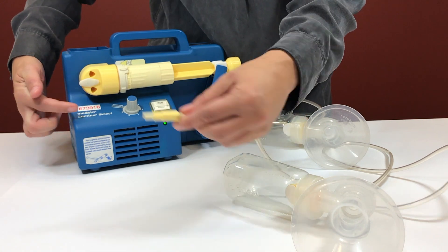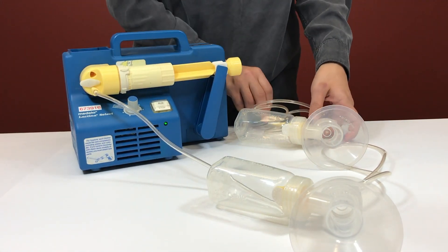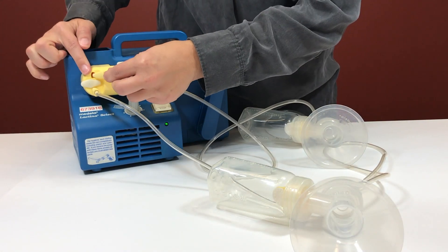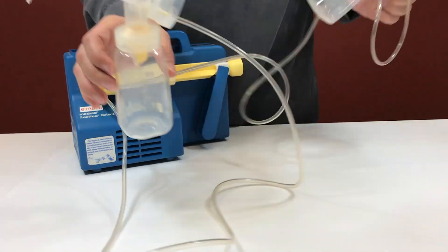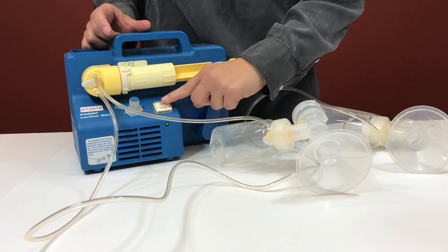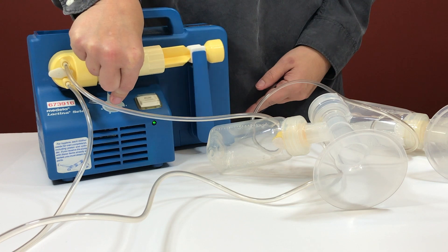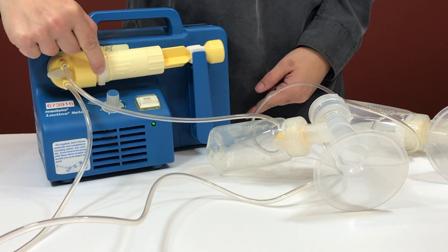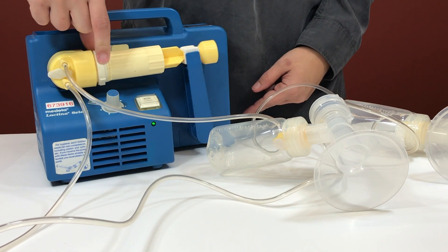The tubing with the triangle ends needs to go all the way on the edge of the yellow connector. Turn the pump on and adjust speed by turning the knob. It is recommended to start with a high speed and then lower the speed to 4, which helps mimic baby sucking. Place the vacuum to the right and increase suction as needed.